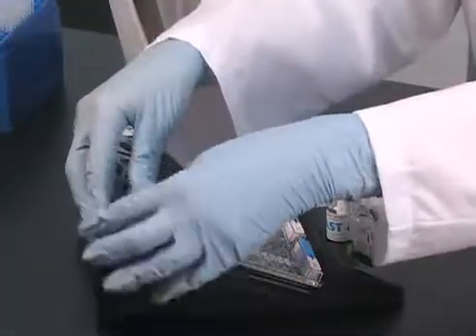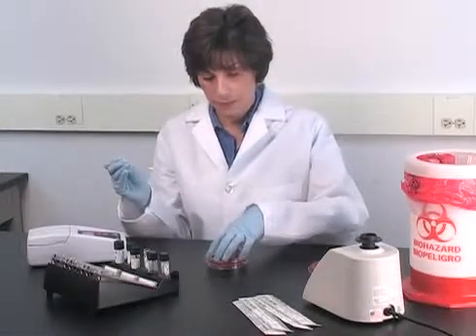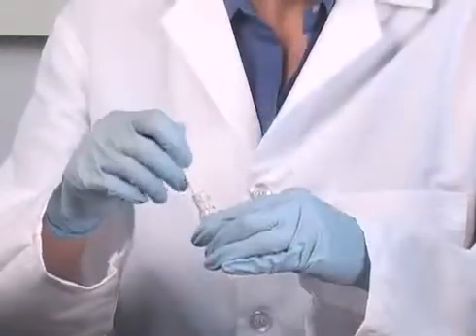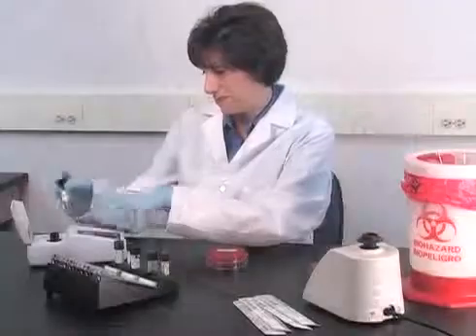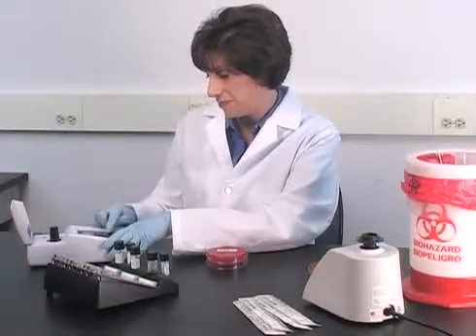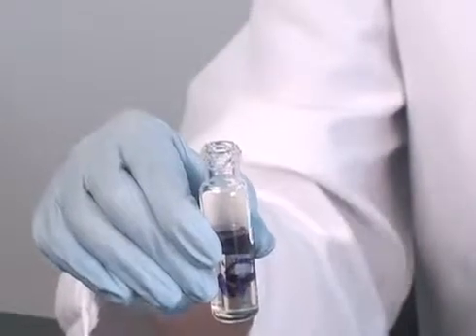To inoculate the Phoenix panel, make a 0.5 or 0.25 McFarland suspension of bacteria in the identification broth and vortex. Add one drop of the AST indicator solution to the AST broth, invert tube, and transfer the appropriate volume from the ID broth to the AST broth.